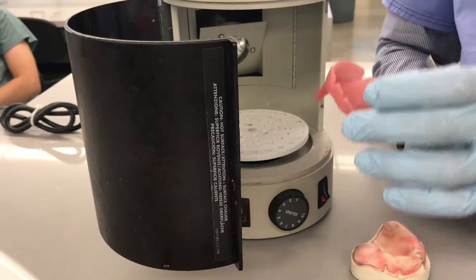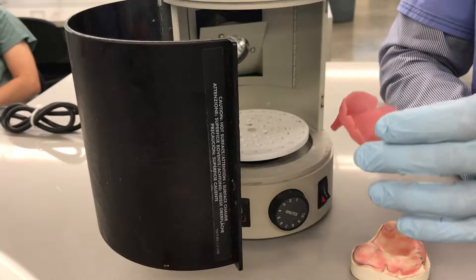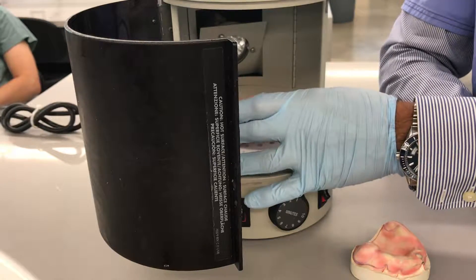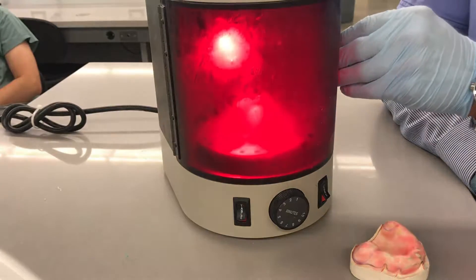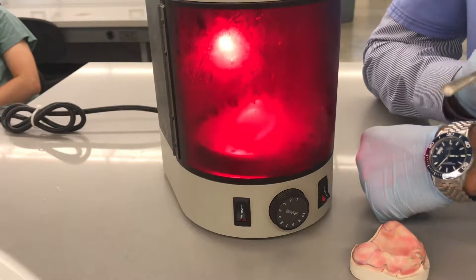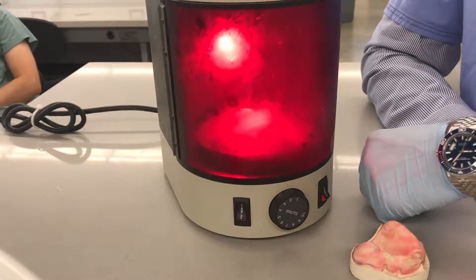For good measure, that this is thoroughly cured, I'm going to put it back in upside down, and I'm going to keep a timer for about 30 seconds.